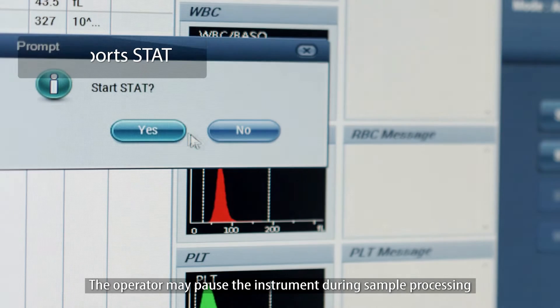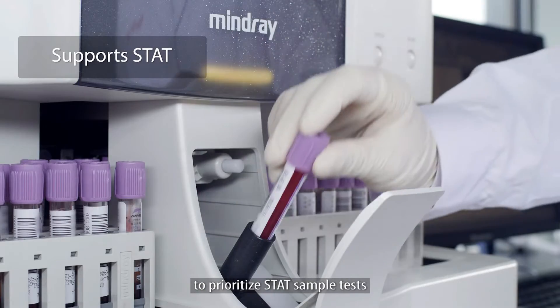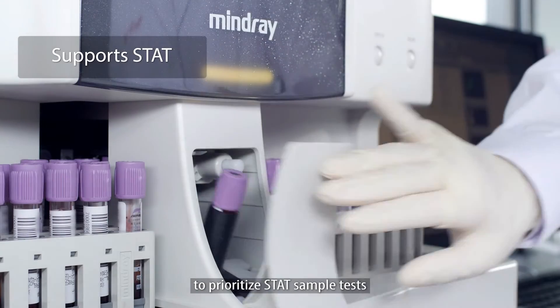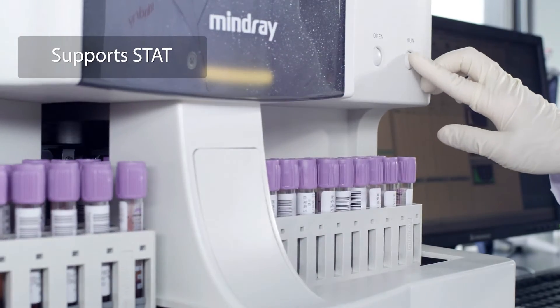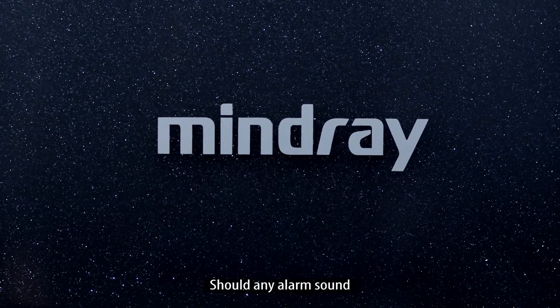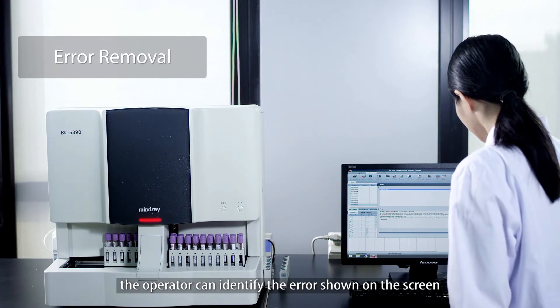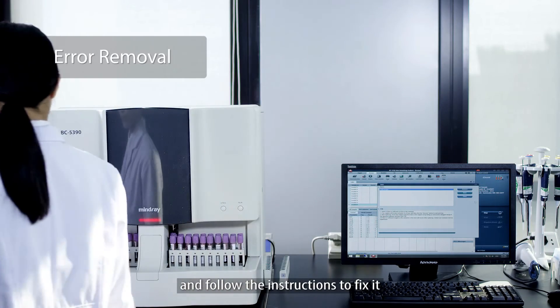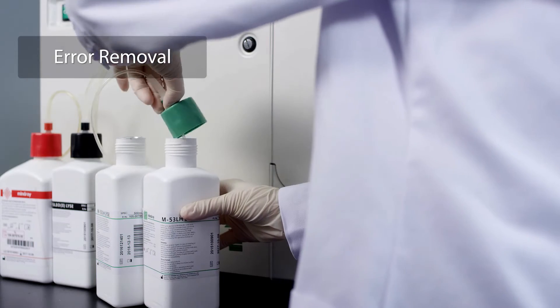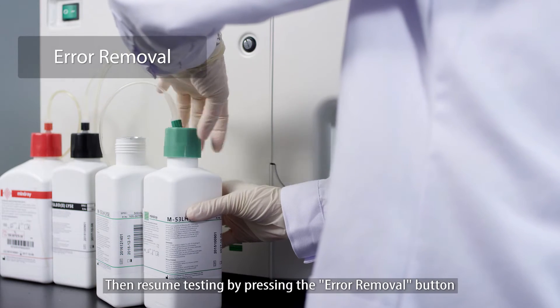The operator may pause the instrument during sample processing to prioritize STAT sample tests. Should any alarm sound, the operator can identify the error shown on the screen and follow the instructions to fix it, then resume testing by pressing the error removal button.